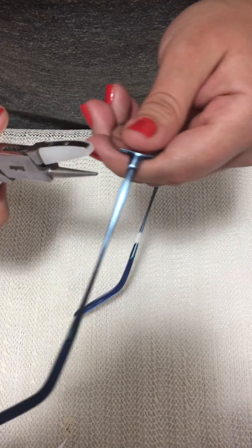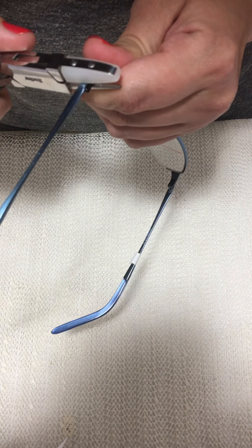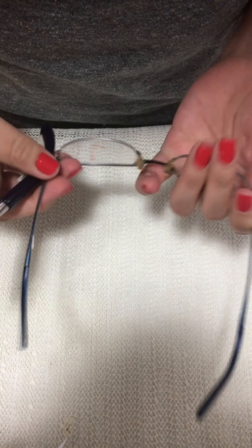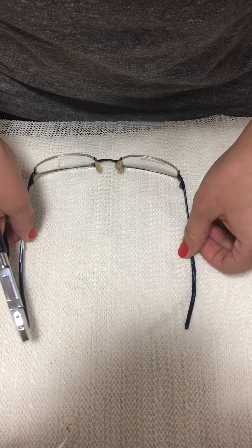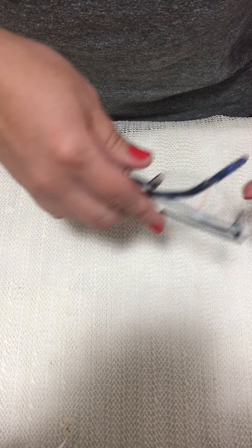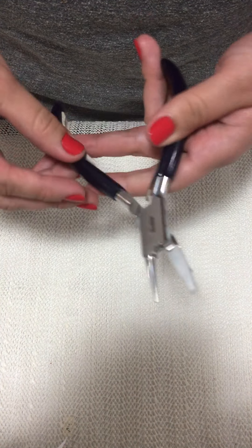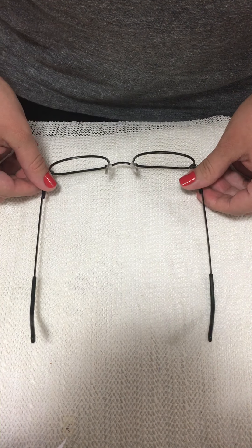I'll press it right here — just a little bit — and double check my work. Now it's better; it's not spread out anymore and looks more like a U-form. That would be temple spread misalignment, using the nylon half-padded pliers as the tool.